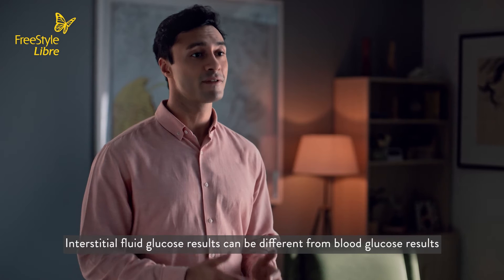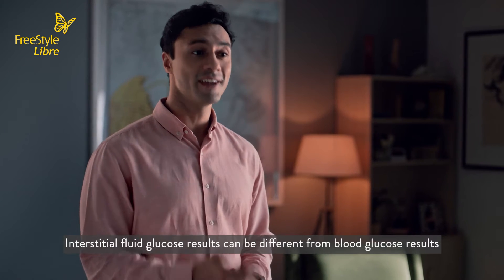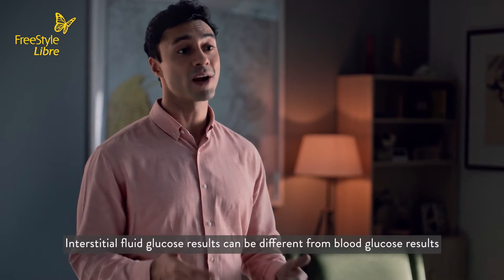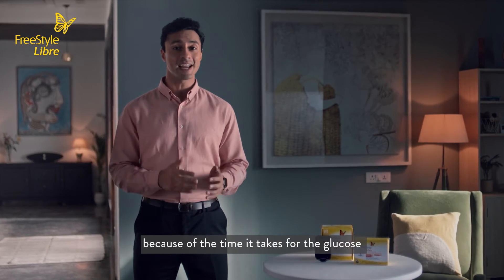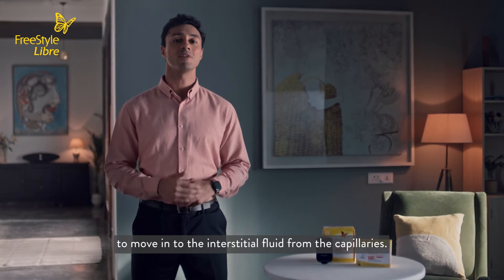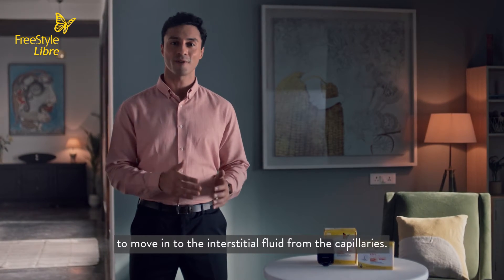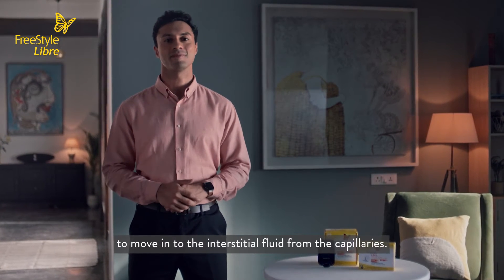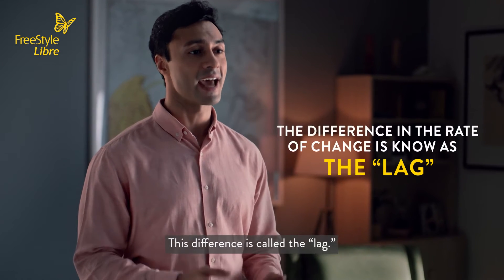Interstitial fluid glucose results can be different from blood glucose results because of the time it takes for the glucose to move into the interstitial fluid from the capillaries. This difference is called the lag.